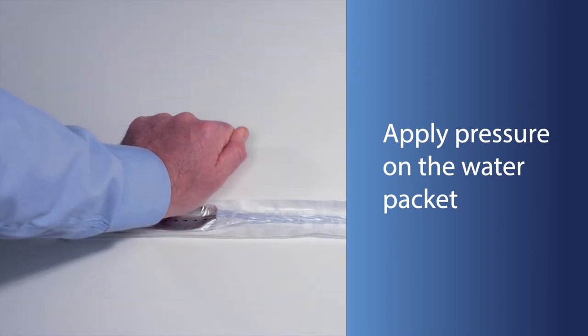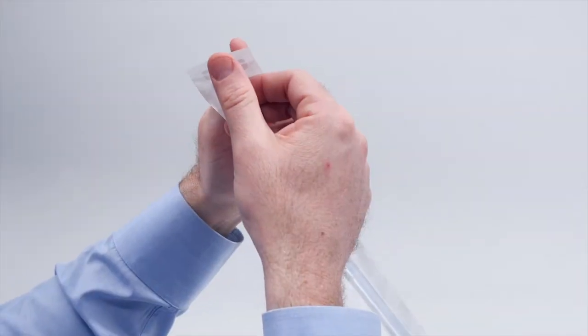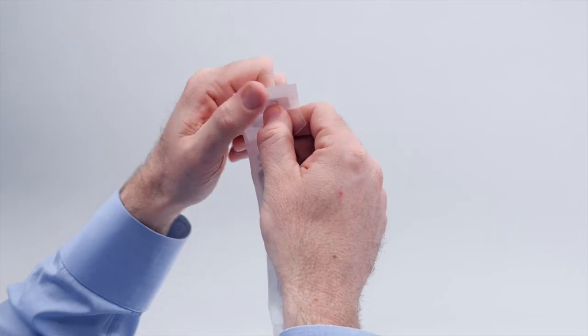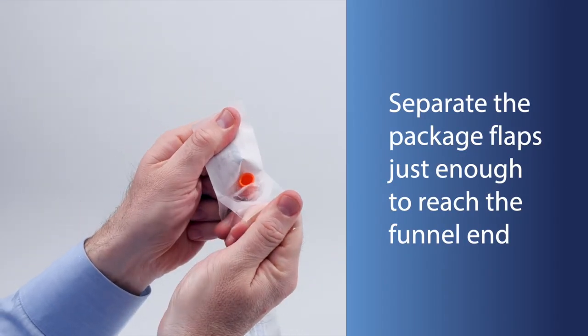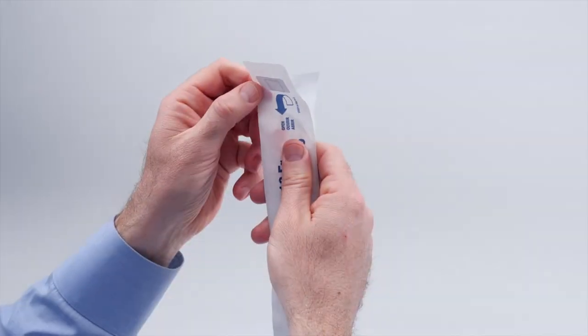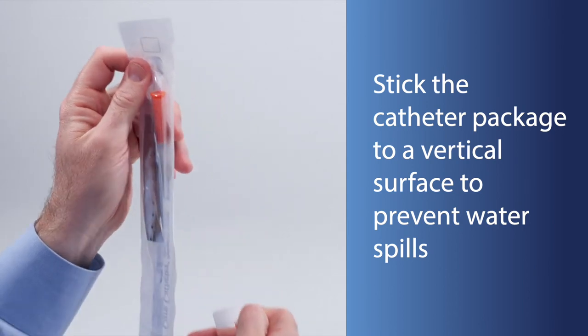Once the hydrophilic coating is activated, it becomes smooth and slippery for a comfortable catheterization experience. The large flaps enable opening with less effort. Open the catheter package just enough to expose the funnel end.